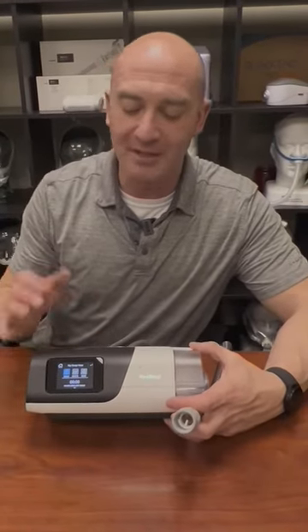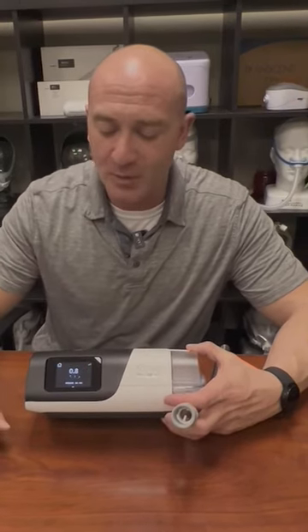The way to tell is you can tell the sound difference. So when I hit start and nothing's on there, machine's very loud. This is the pressure on. This is your machine on. When I turn it off, very quiet, but you still have that air coming through. So a big difference there.